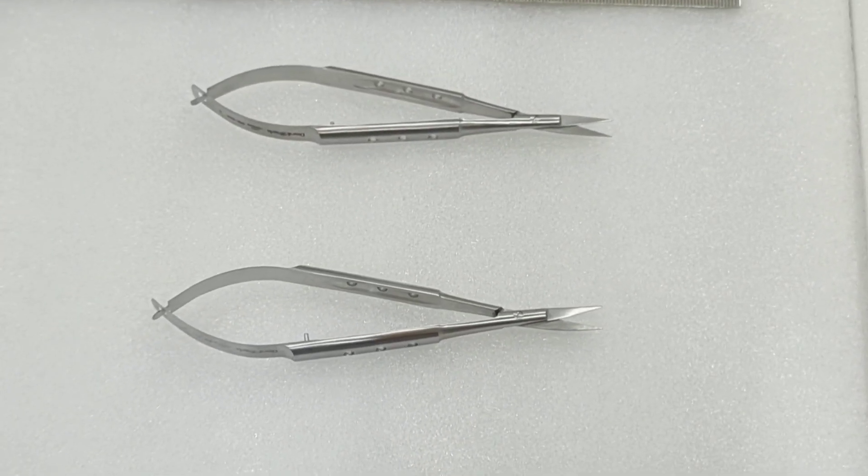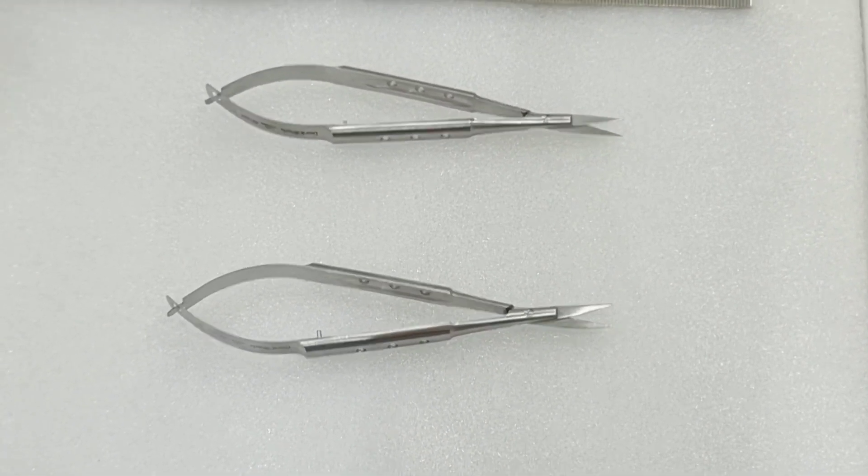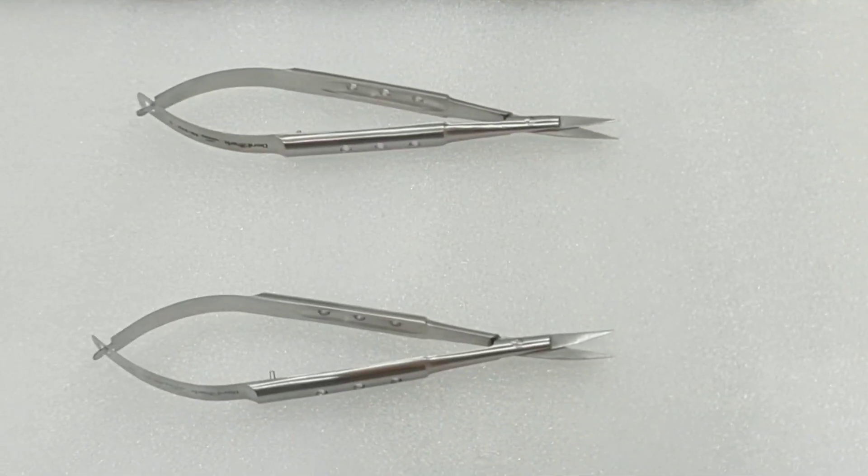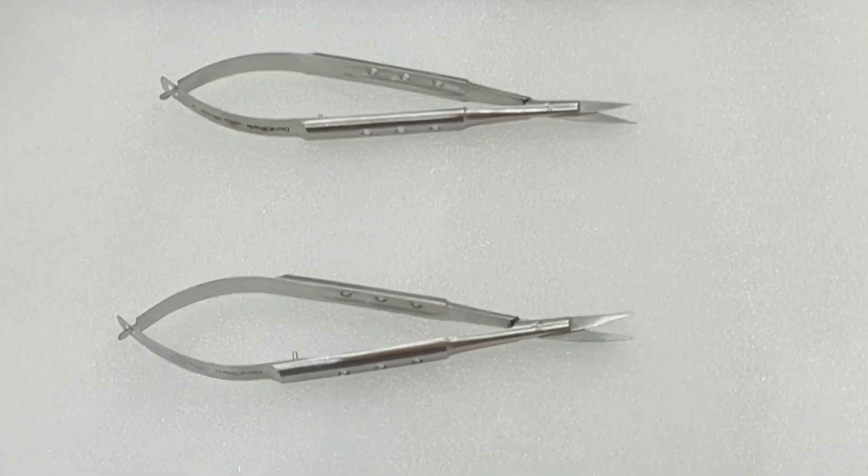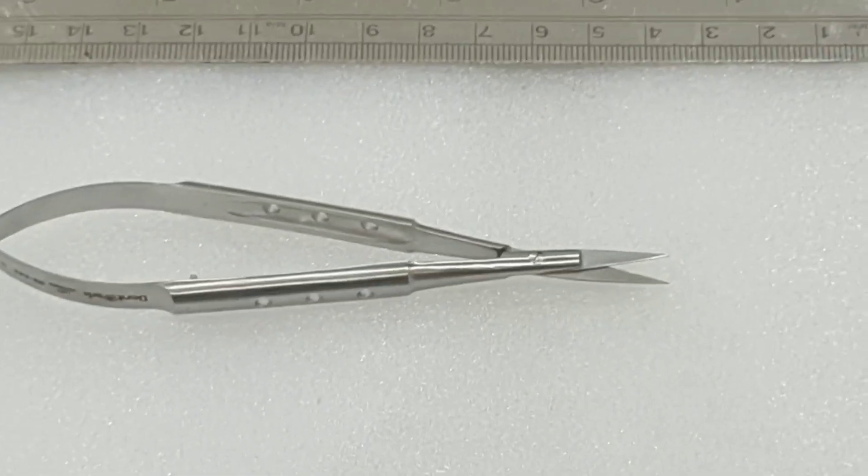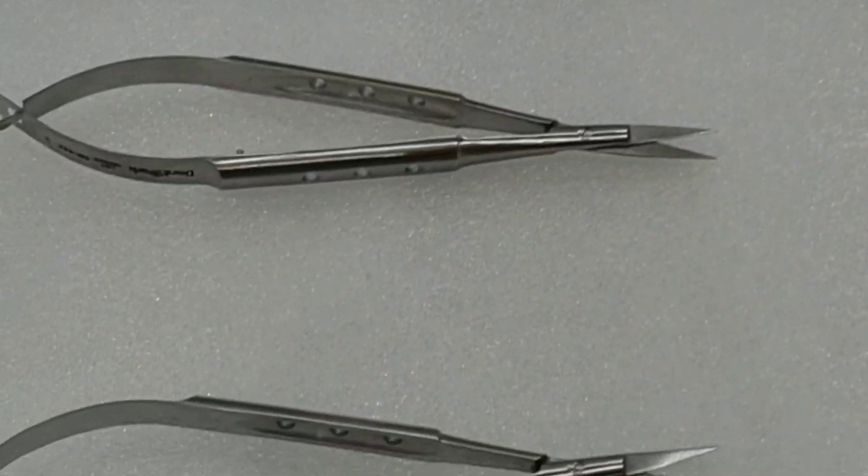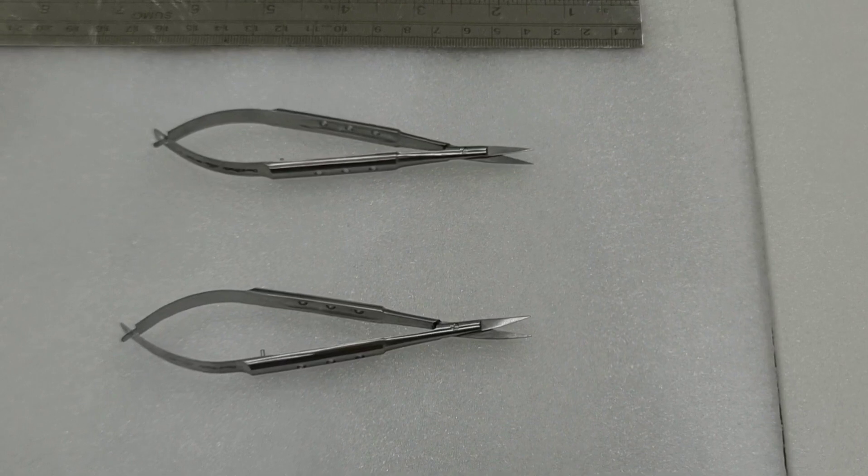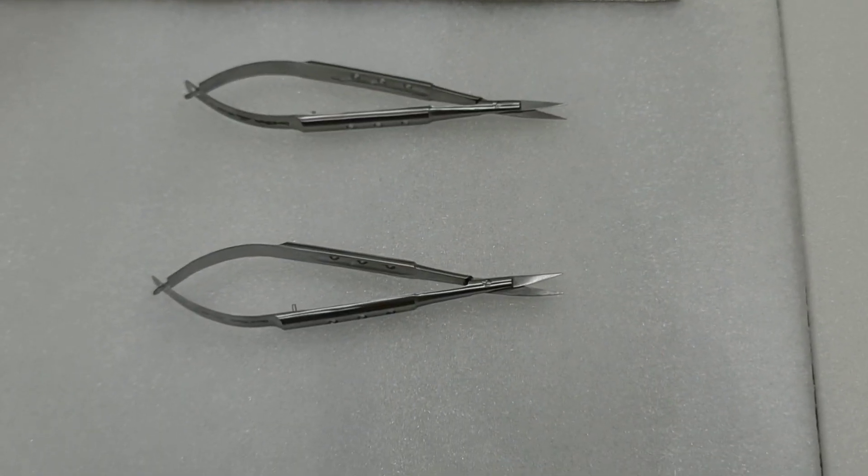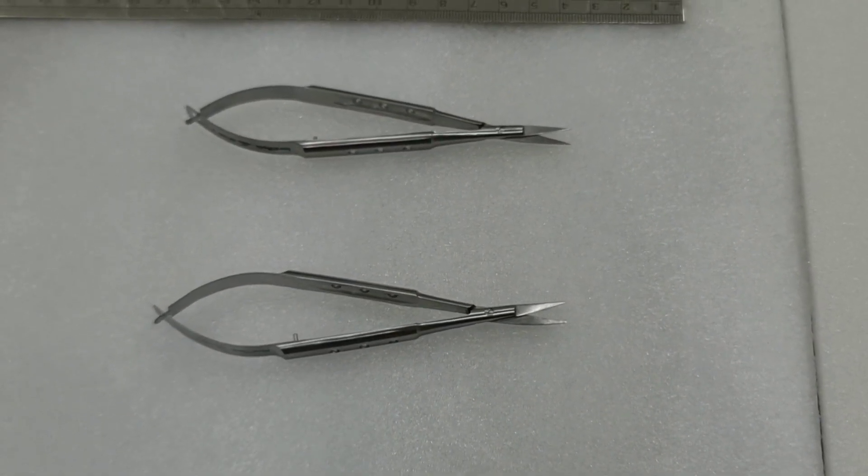Both are 12 centimeter long high quality stainless steel. This delicate and unique design crafted by Dantmar is made with fine and sharp tips with double leaf mechanism which allows cutting of fine tissue and sutures with precision.